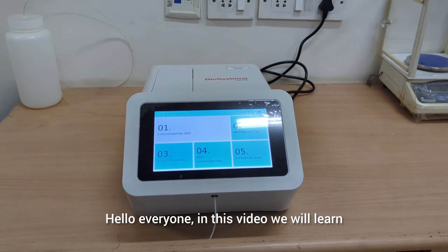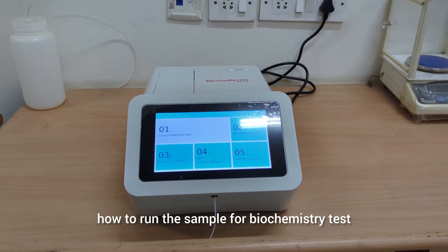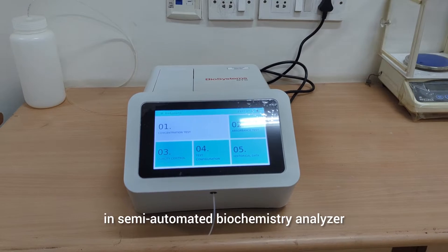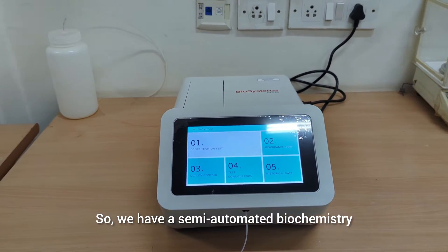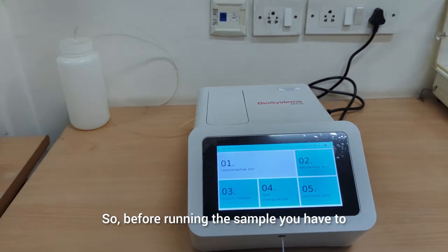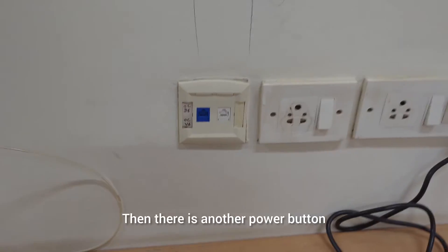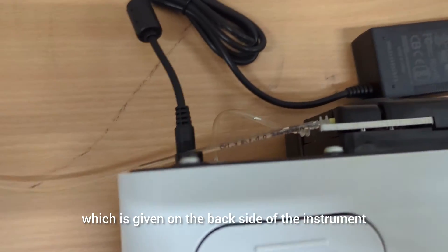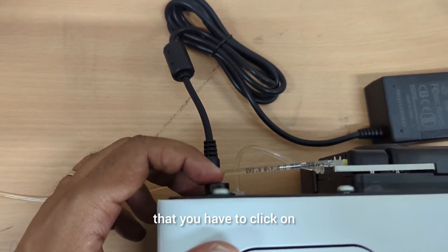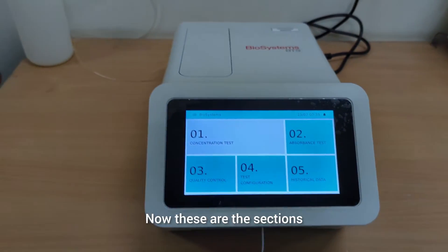Hello everyone. In this video we will learn how to run the sample for a biochemistry test in a semi-automated biochemistry analyzer. We have a semi-automated biochemistry analyzer from Bio System. Before running the sample, you have to switch on the main power supply, then there is another power button on the back side of the instrument that you have to click. After that, the machine will be switched on.